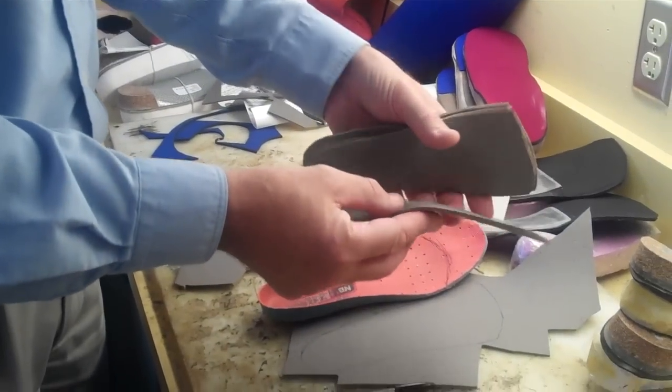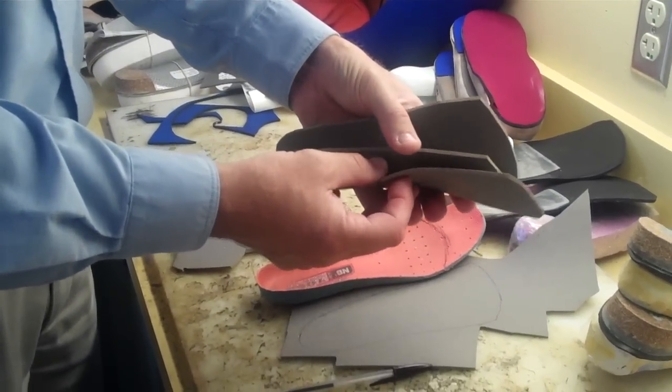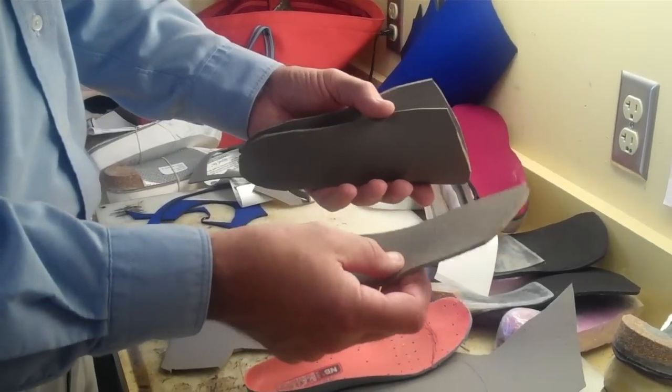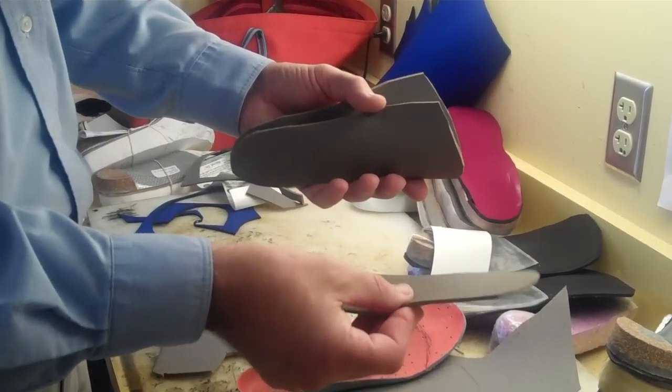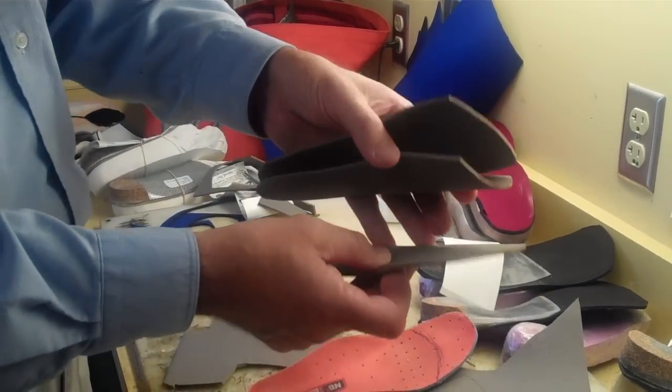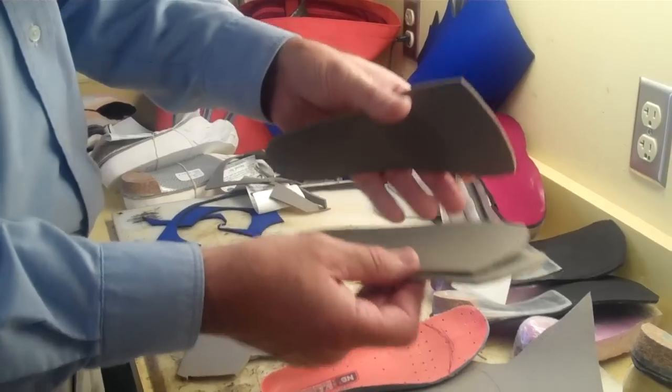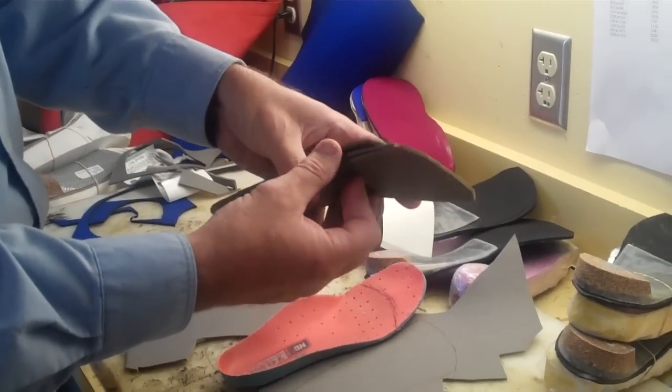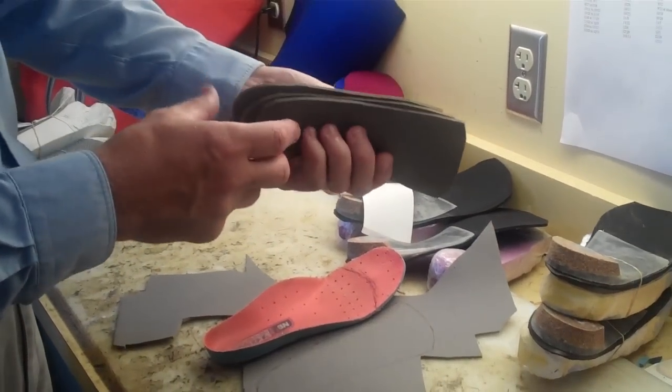So I've already pre-cut out 3 of them, each one is an eighth of an inch, and Liz would add, as she got used to these, wear one lift for 2 or 3 weeks and then add a second lift, maybe go back and forth between the two, then add the third lift, paying attention to how her symptoms are.